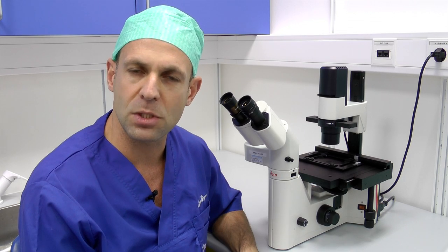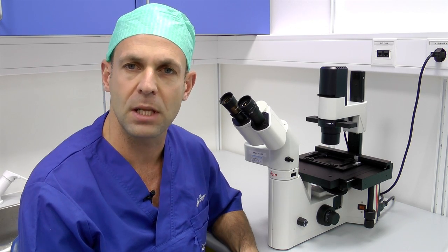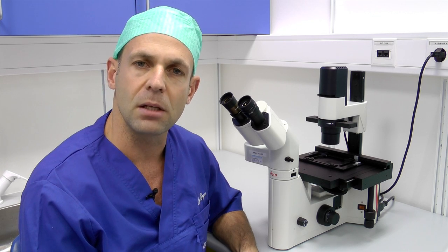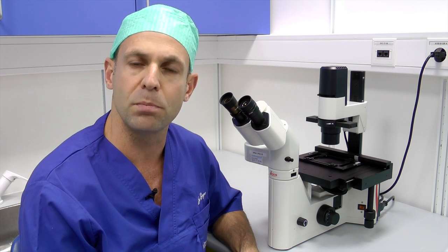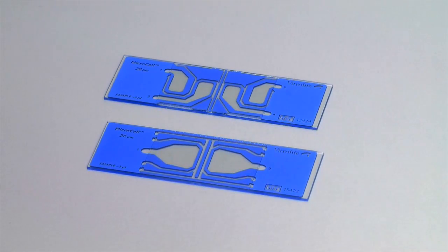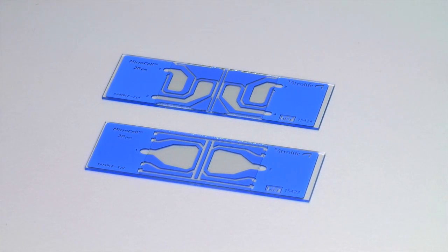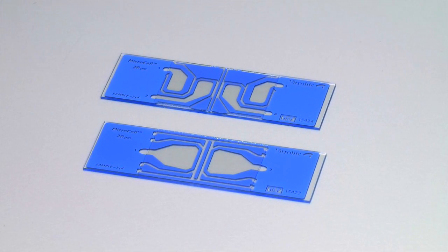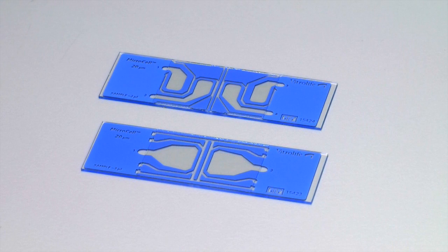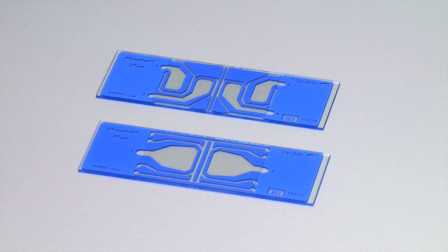MicroCell is a single-use disposable counting chamber for sperm concentration and motility analysis. The MicroCell is also compatible with computer-aided sperm analysis systems. MicroCell comes in two different designs: two and four chamber. It has a closed chamber design and fixed rigid cover slip. The consistent chamber depth of 20 µm is ensured by interferometry.